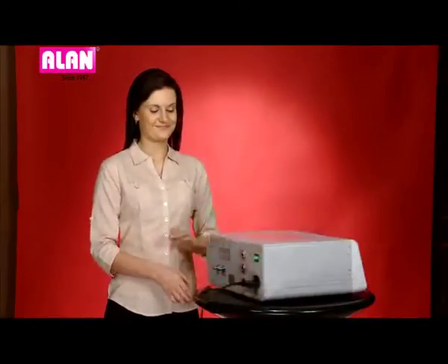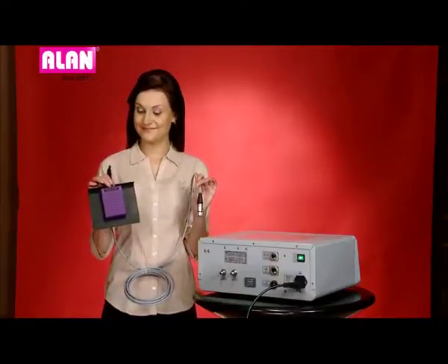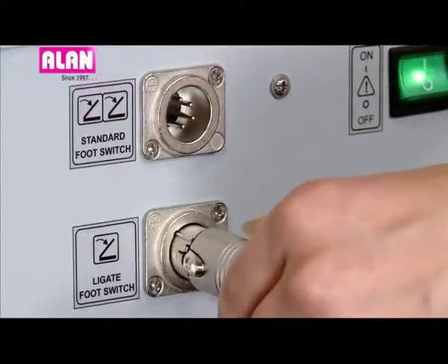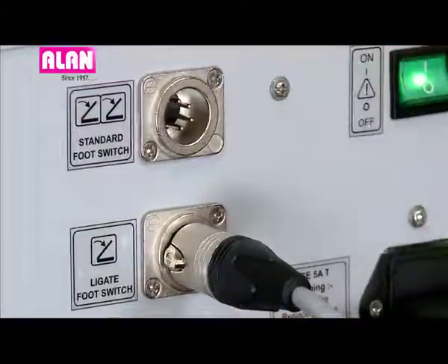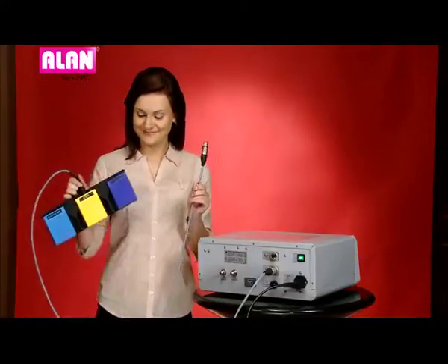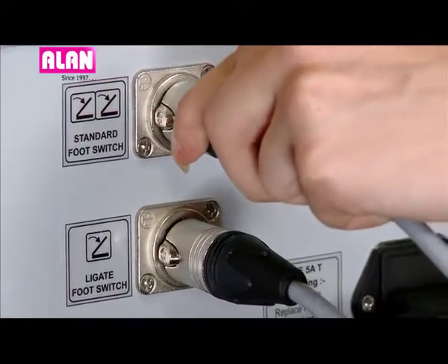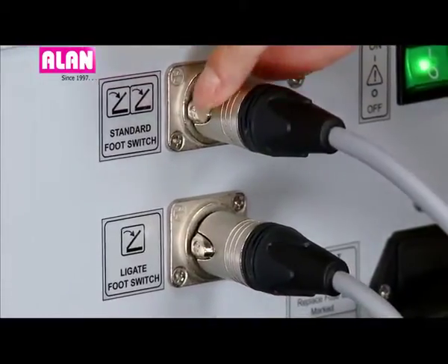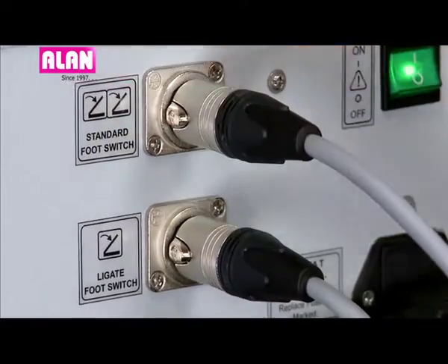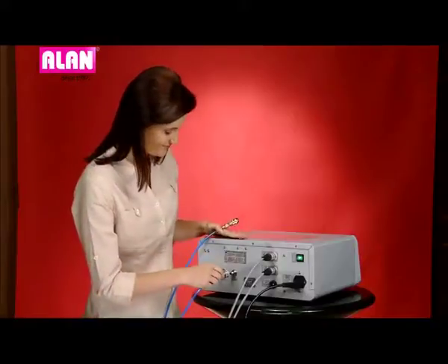Let's see the connections for the footswitch and argon inlets. The single-pedal ligate footswitch connects to the ligate footswitch port. The two-pedal or three-pedal footswitch connects to the standard two-pedal or three-pedal footswitch port. Press the notch and pull to unplug the cable; the same applies to the ligate footswitch. Just push to lock the hose pipe in the argon inlets.